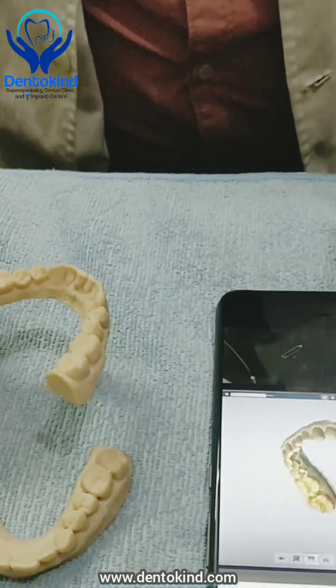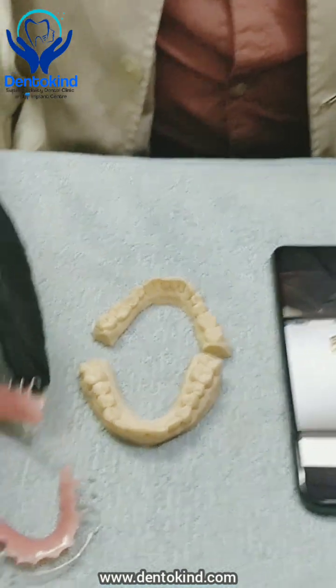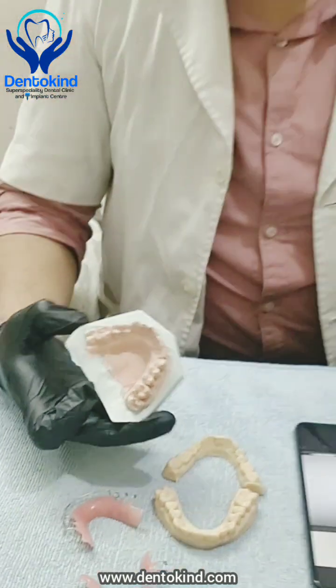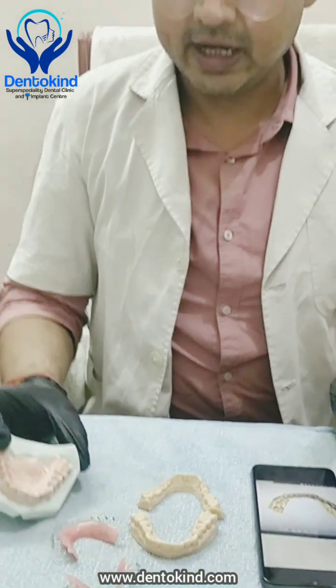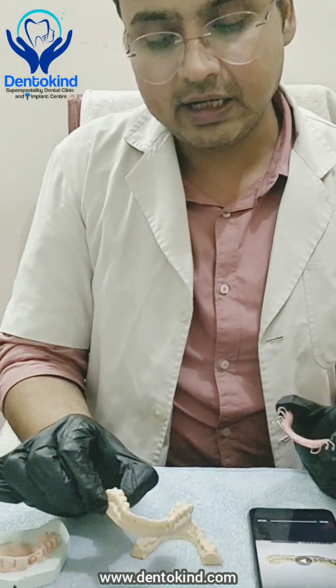We have printed this 3D cast and after that we have duplicated it for another set because they wanted 2 upper retainers. This was the preliminary cast which we printed and then we duplicated it with stone.